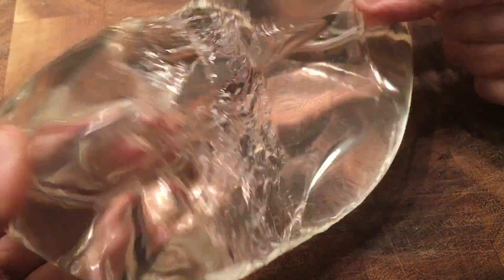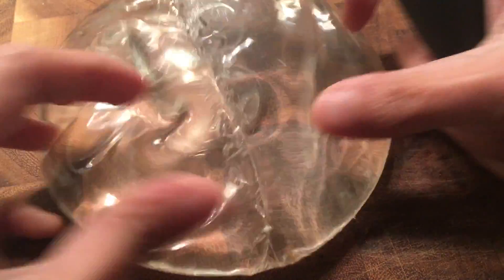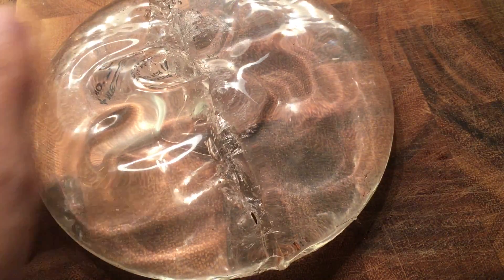So I may have destroyed my knife but the implant actually looks pretty good. It's a silicone gel implant and this is the traditional one that we've been using on and off for about 50 years.